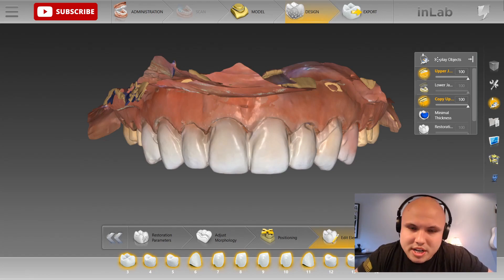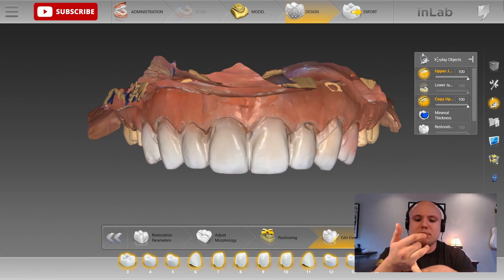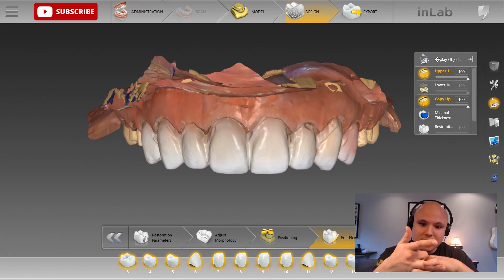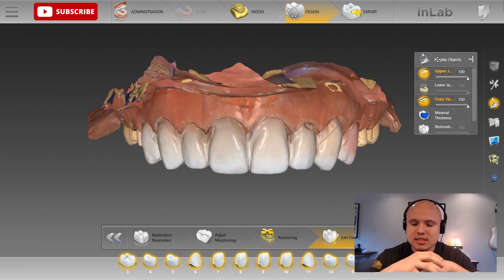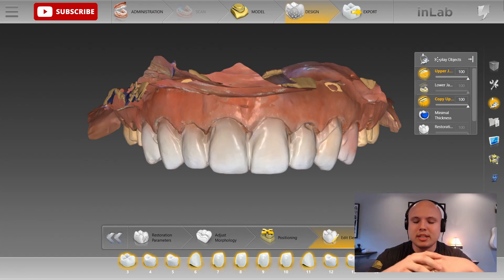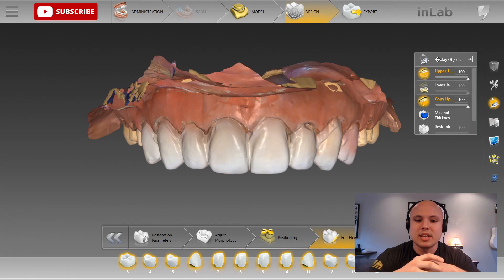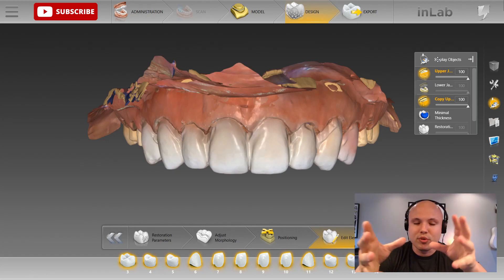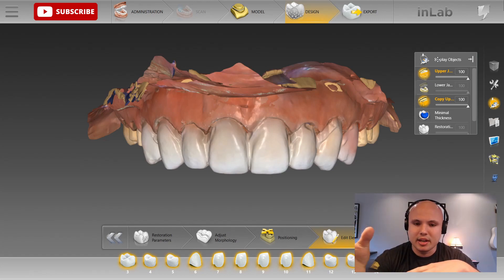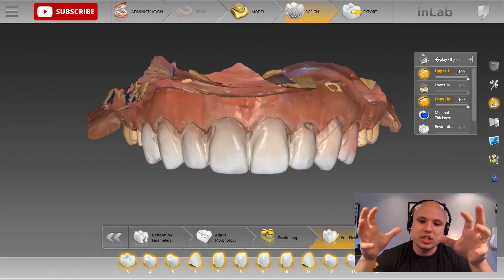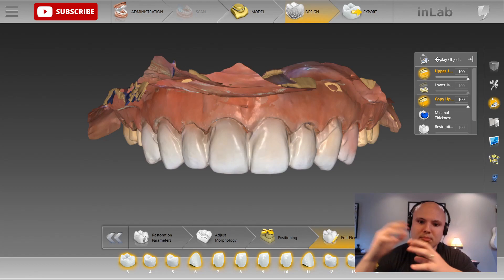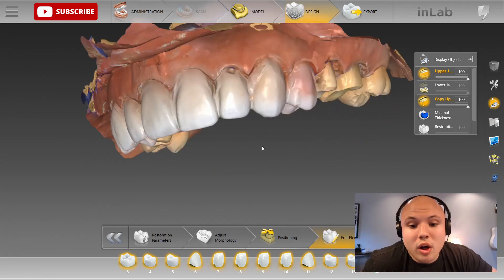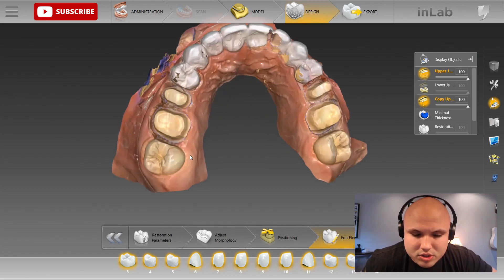So what's the remedy for this? Well, you can manually correlate — or this is the technique I'm going to show you. I didn't come up with this. A client of mine recommended this technique; he said that he's used it before and he likes it. This technique is going to allow you to do a full arch case, have your biocopy scan, but also have the software automatically correlate that biocopy scan with your prep scan, even though there are no data points that really correspond with one another. What he's doing is creating data points to correspond with one another.